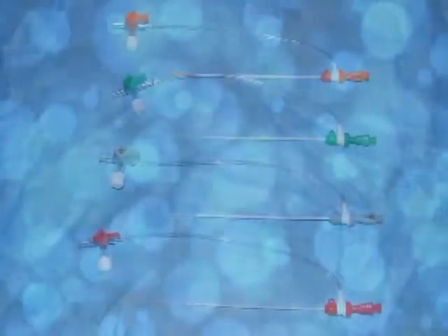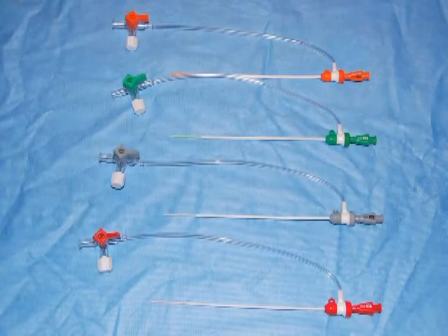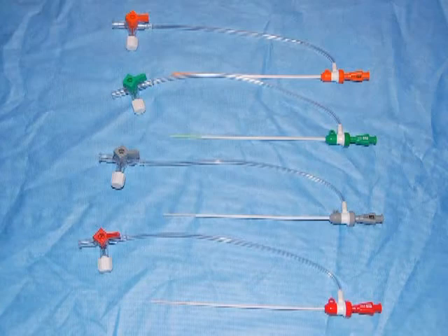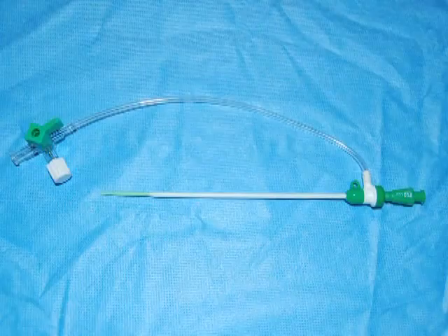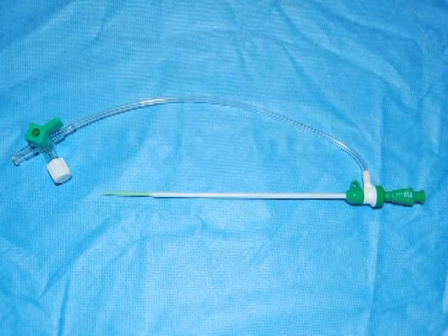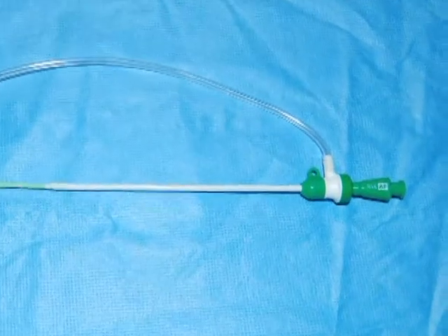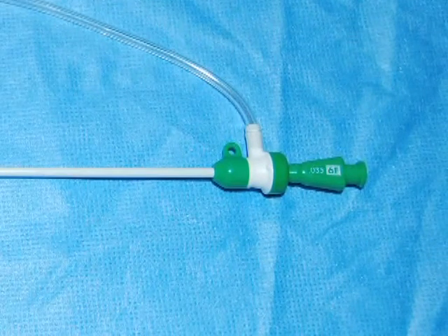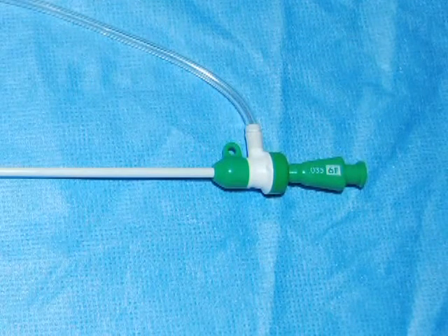Vascular sheaths are used to maintain access once vascular access through needle puncture and wire insertion has been accomplished. These vascular sheaths come in varying lengths and varied diameters. They have a valved end through which the catheter passes easily and prevents back bleeding of blood.